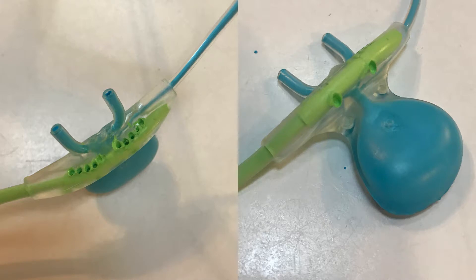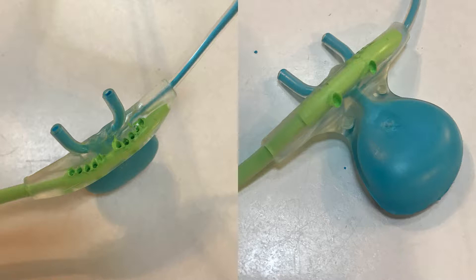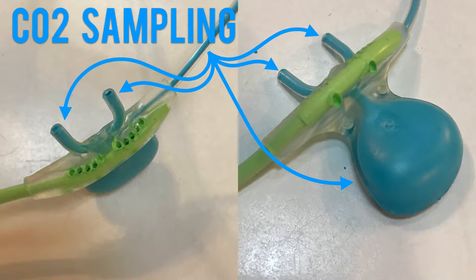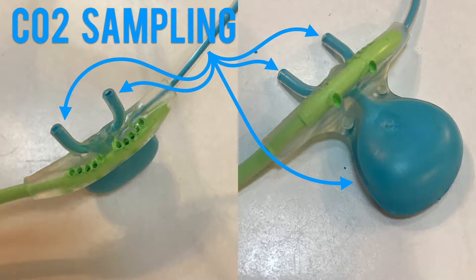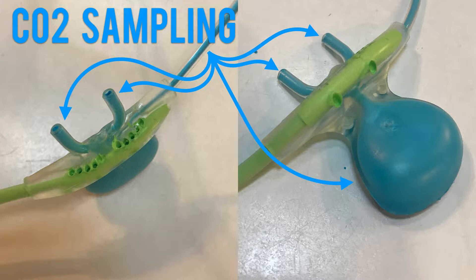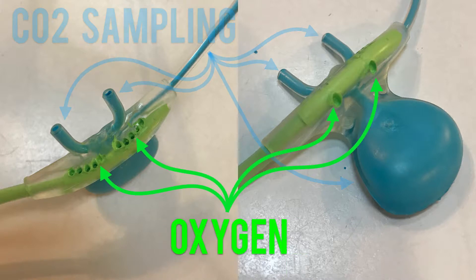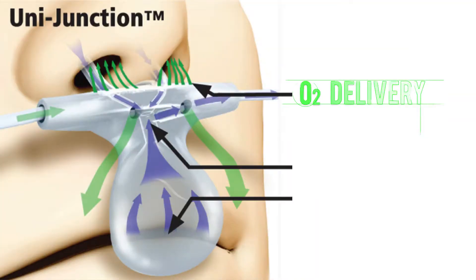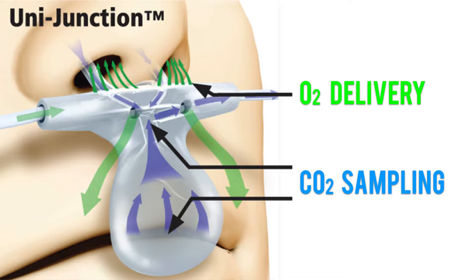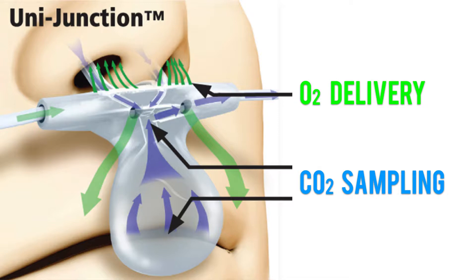Number two: the sampling device itself. There's quite a bit of confusion, especially when it comes to this nasal cannula version of CO2 sampling, as to where the air is coming out of and going into this device. Everything you see dyed in blue is for CO2 sampling — air is drawn out of the patient and sent back to the monitor for a sampling of CO2 content. Contrary to popular belief, neither the little nose prong things nor the mouth dish — I believe that's the technical term — is for oxygen delivery. Everything you see in green is actually where the oxygen is being delivered from. It sits on the patient's upper lip and hyperoxygenates the air space in front of the patient's nose and mouth, relying on them to inhale to draw some of that air in. It doesn't work like a regular nasal cannula, so you can't use this device for passive pre-oxygenation.